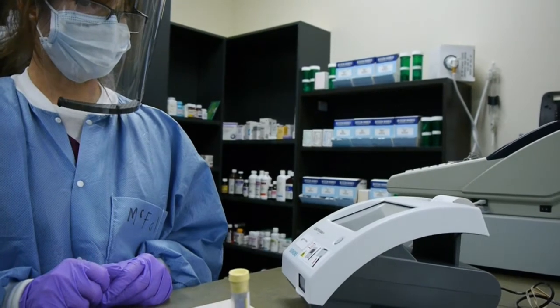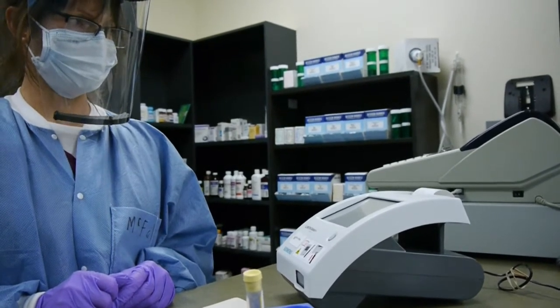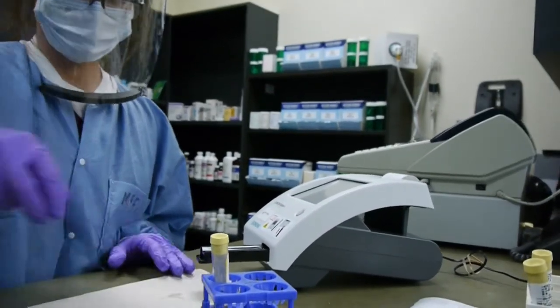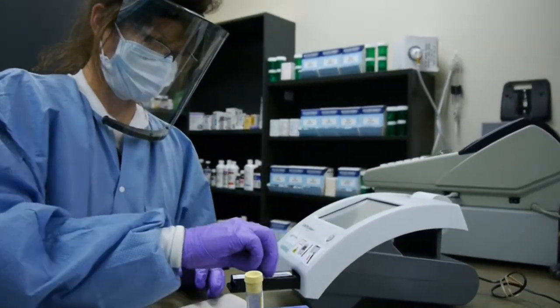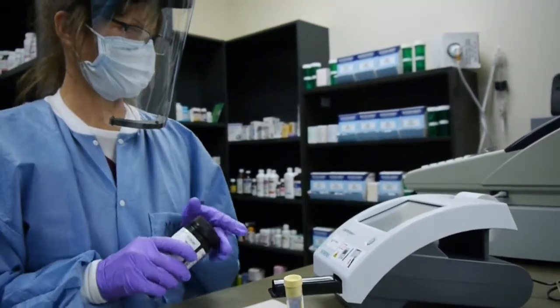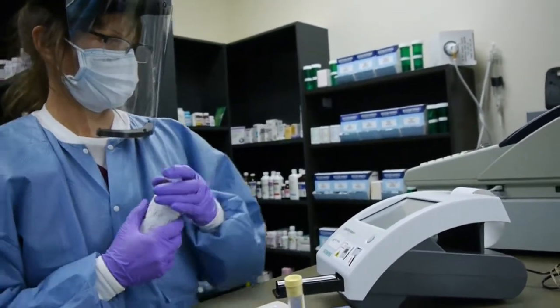Once you have the pattern of how the analyzer works, try to do things the same way each time — that way you won't make a mistake. But sometimes the telephone rings, or someone comes in, or a stat comes — you get a cerebrospinal fluid or something that needs your immediate attention — and you can just walk away and let the analyzer finish what it's doing.